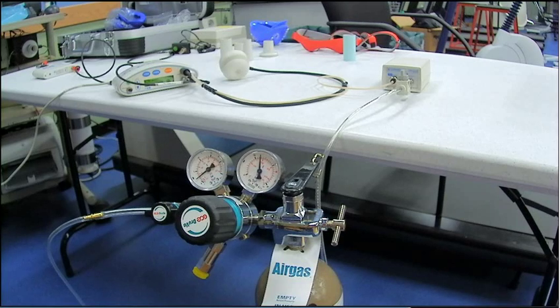And you've got to do that in a relatively quick manner because it's still doing a gas calibration while all that's going on. And so now right now, if you're looking at the graph screen, you'll see a bunch of the blue and red lines will fluctuate up and down to show decrease, increase, and change in gas and whatnot.